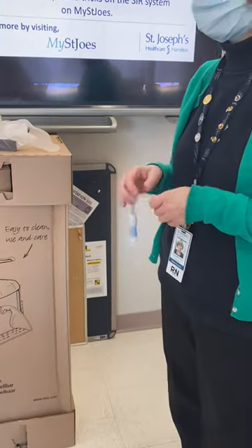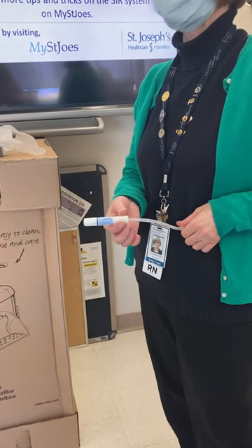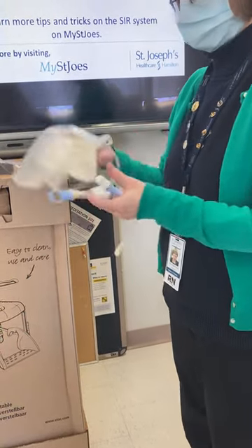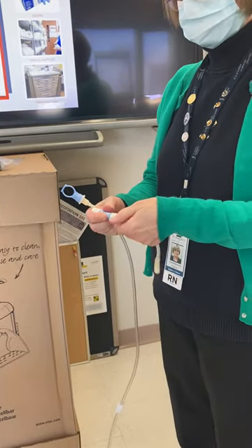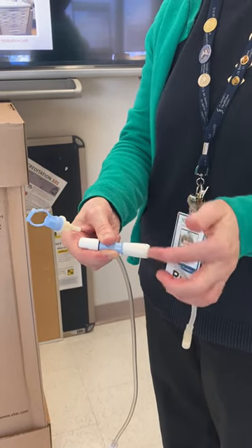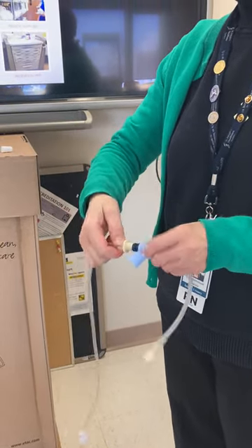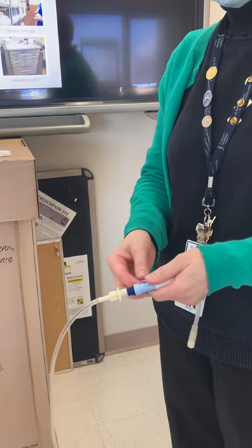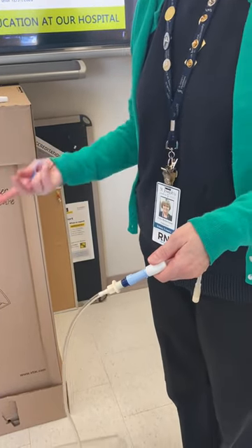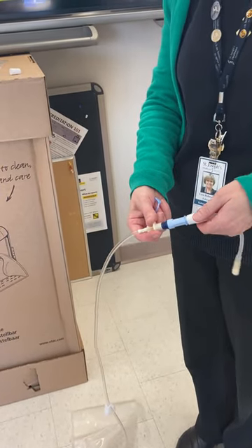There are one of two scenarios. Either the patient is capped off — this is the transfer set you'll find attached to the patient — or the patient is attached to the machine. If the patient is capped off, make sure the twist clamp is closed, then open up your drain bag. The twist clamp opens and closes — this is it opened, and this is it closed. You can feel and hear it click in place. Remove the cap, connect the drain bag — some povidone will drip out and that's fine — then open the twist clamp to drain the patient. It takes about 20 minutes to drain, and by that point the PD nurse will be down.